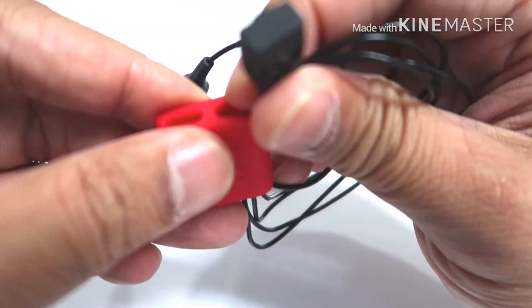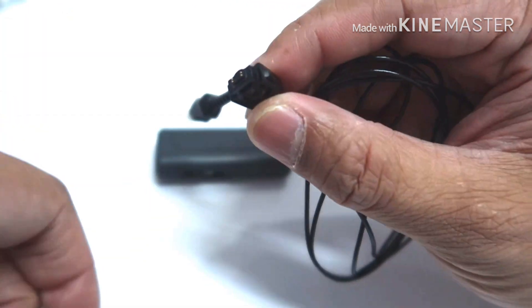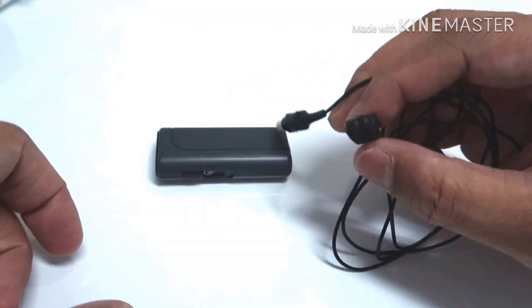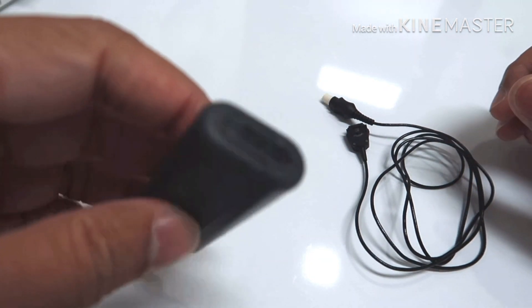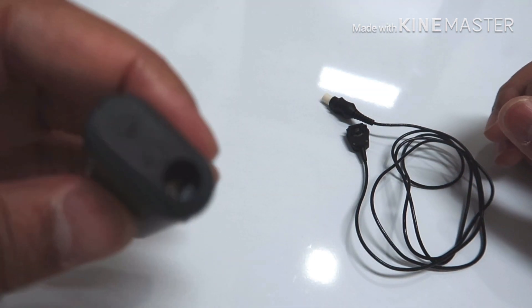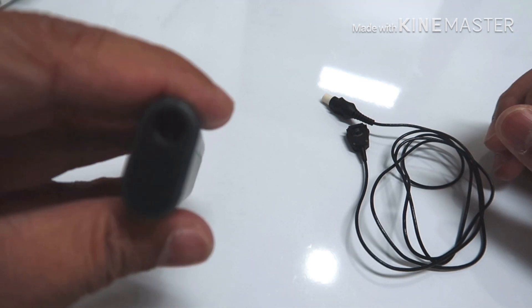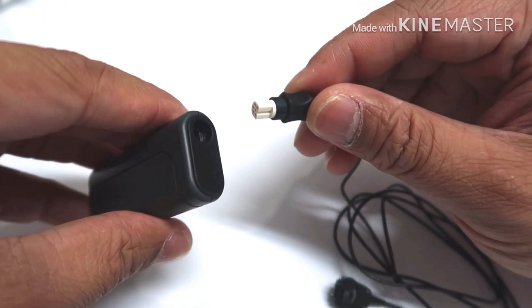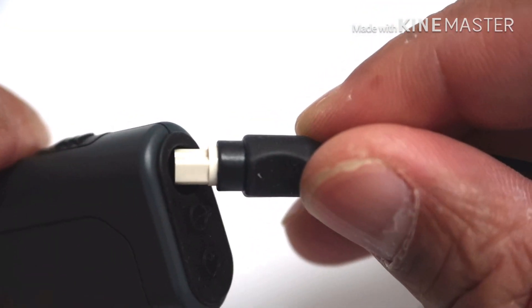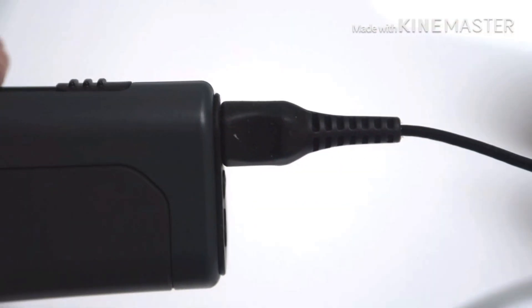Gently remove your cable from the Rondo 2 cable, and slowly remove the Rondo 2 pin cover. Attach the mini battery pack and the Rondo 2 to mini battery pack cable in accordance to the ridges in your plug and socket for the two devices.